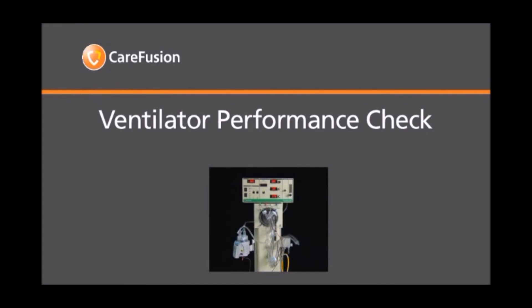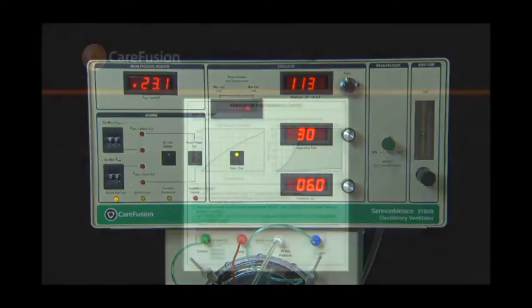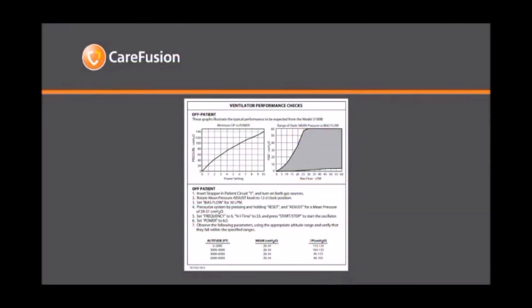To carry out the ventilator performance check, follow the instructions on the label located on the top of the ventilator.